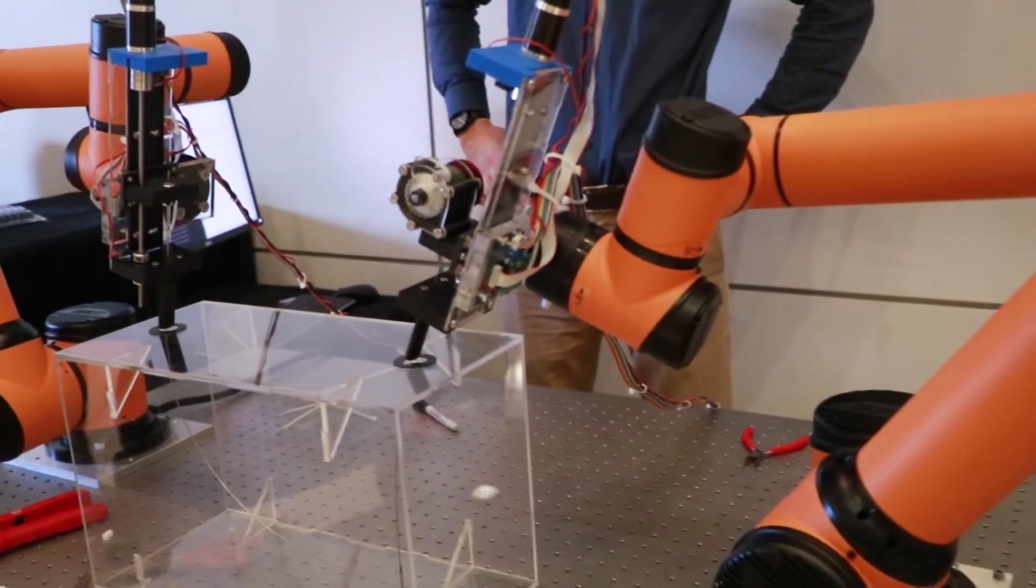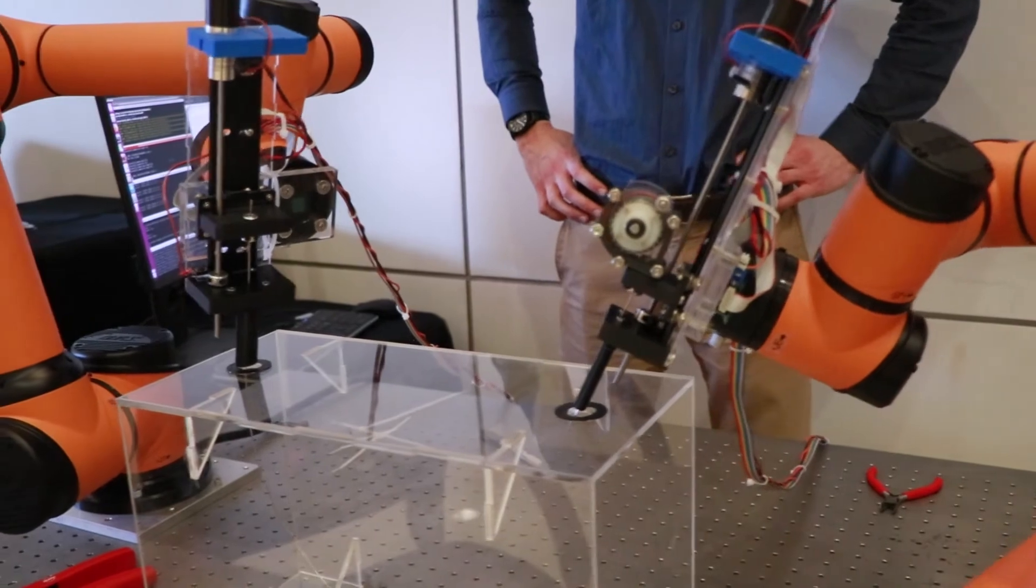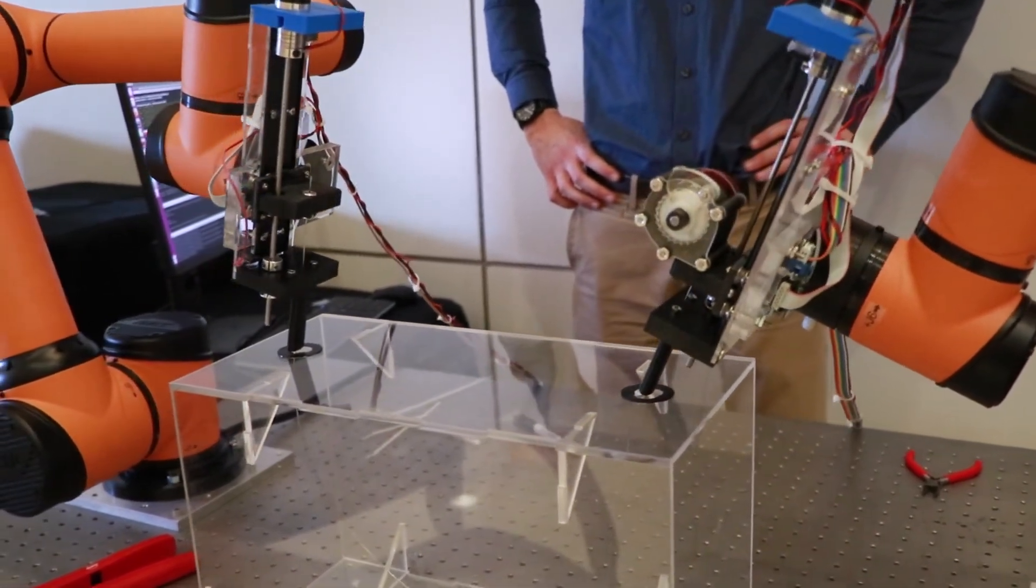We have lots of really small tools that we can deliver into the chest cavity in a really small way, in a really minimally invasive way, and do lots of different types of procedures inside the chest.